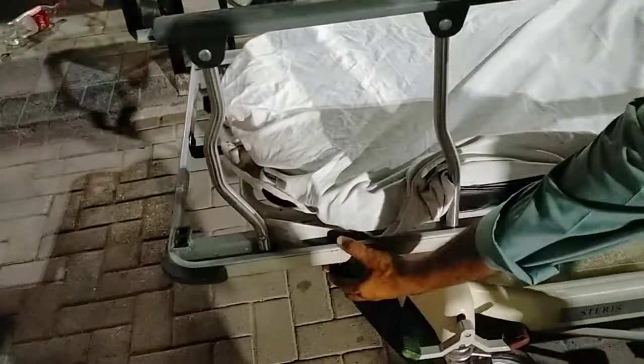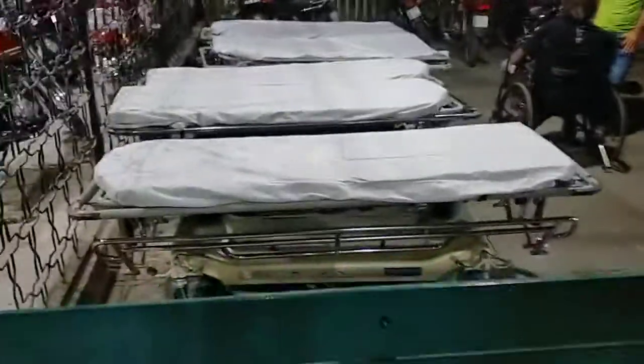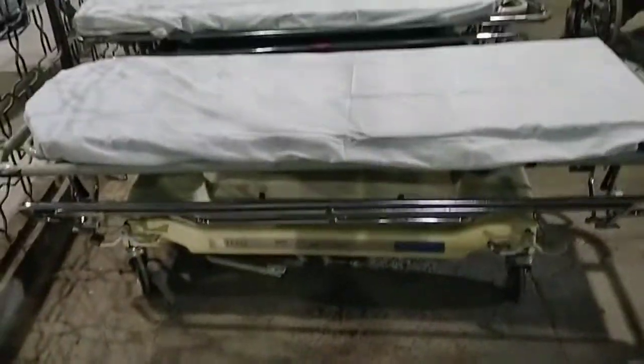When you press it, it will go down — it is the same way. This keeps the patient comfortable. For transportation, this is a solid, sturdy stretcher, and the rest of the stretchers are placed on this side. There are some modifications, but generally the principles in their hydraulic system are the same.